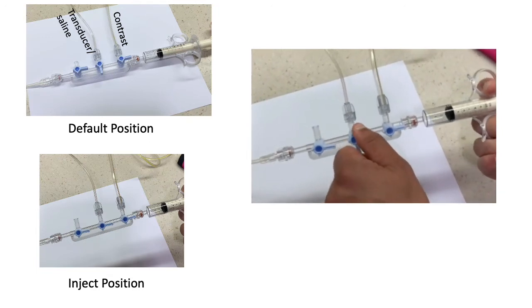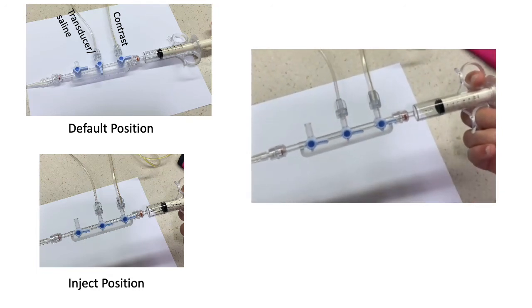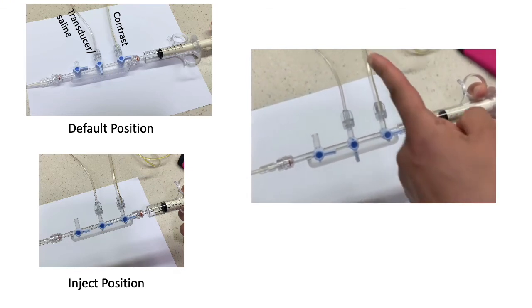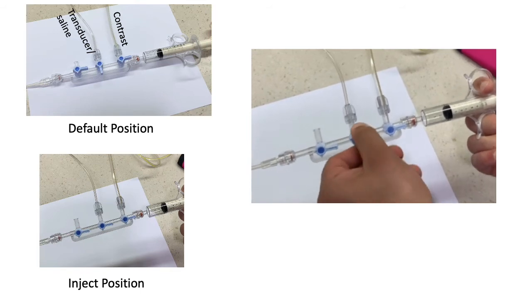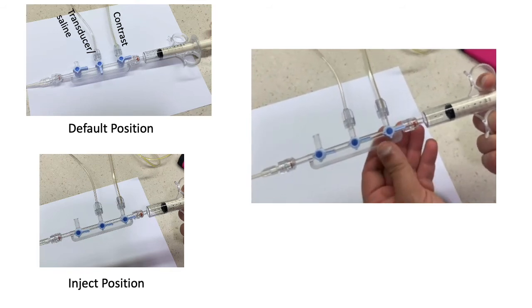The inject position is shown in the bottom left, where all the valves are turned to the right and aligned to allow for forward injection. The video to the right demonstrates the same thing.